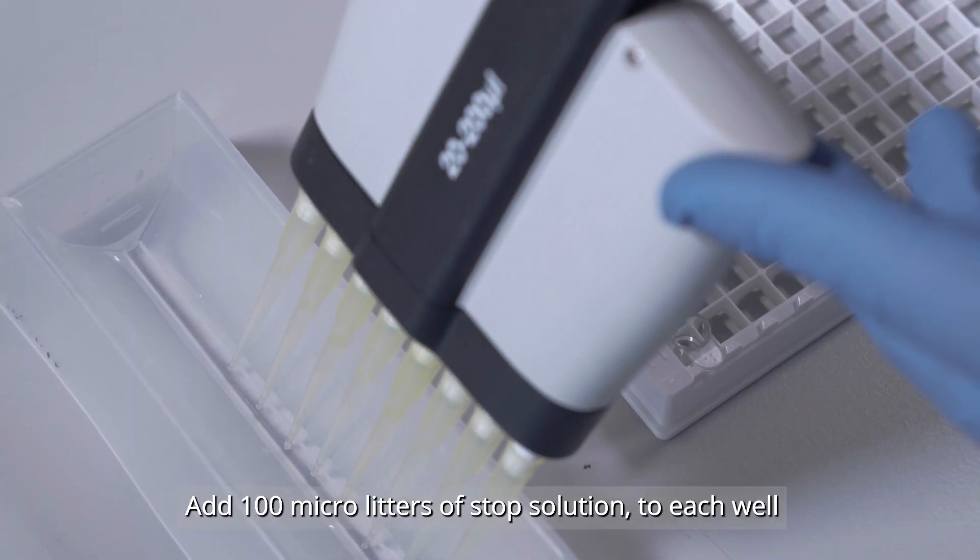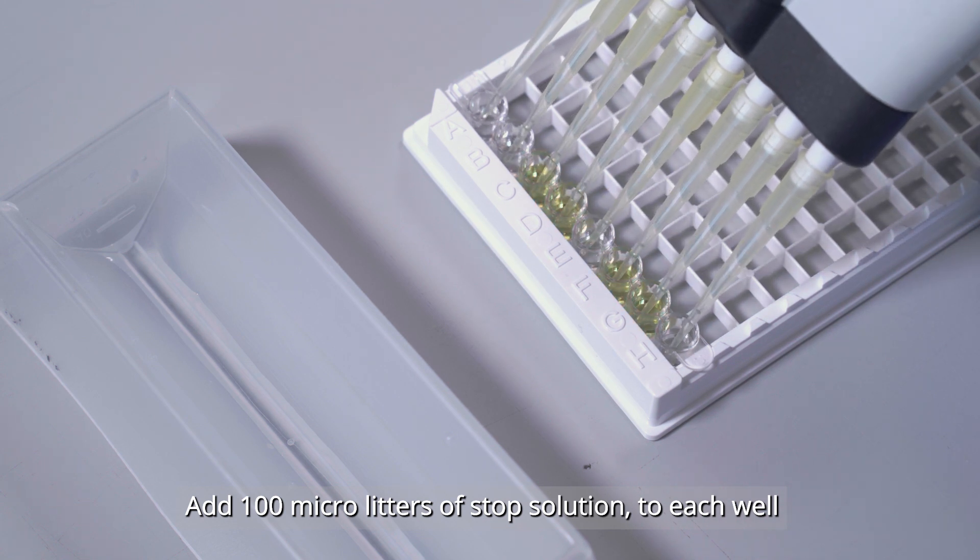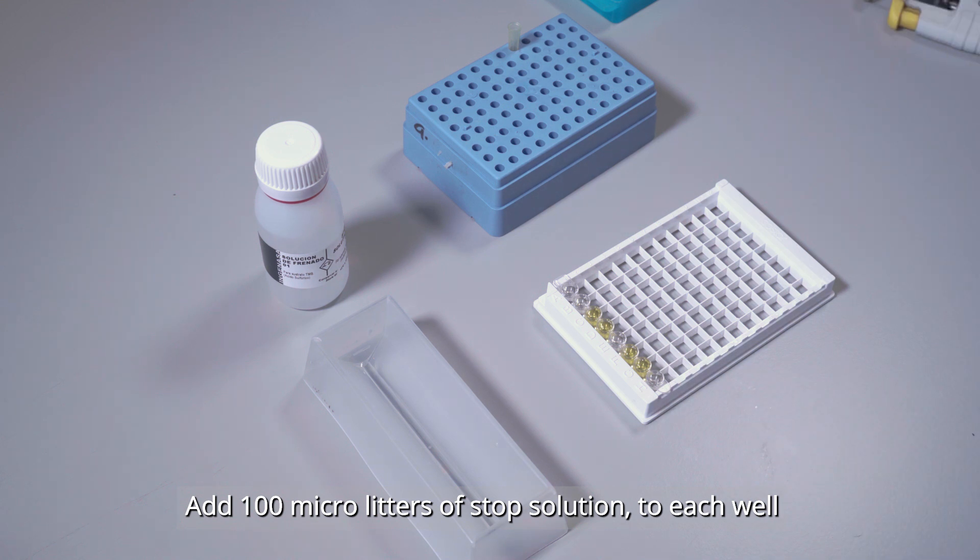To stop the reaction, the dispensation of the stop solution has to be made in the same order as in the previous point, so all the samples will have the same incubation time.